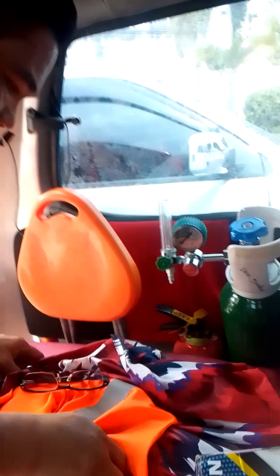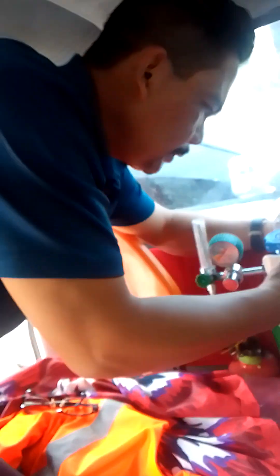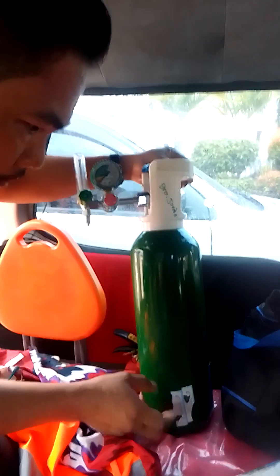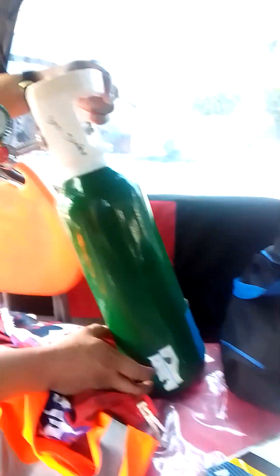Ready Set Bro. This is Medical 101 from Retired Enforcement Officer Professor Bro Jordan, lecturing on how to use this Medical Portable 7-kilo Oxygen.